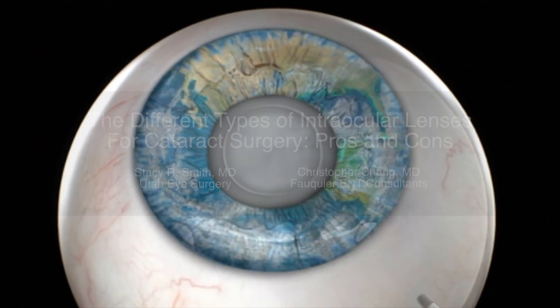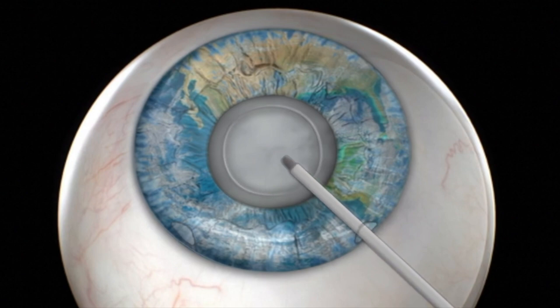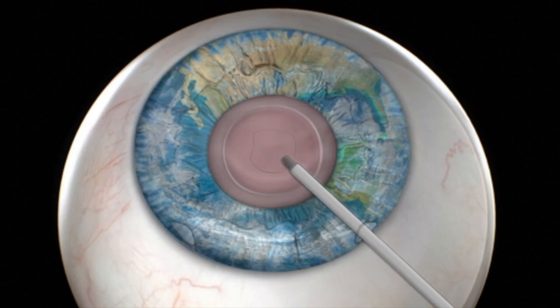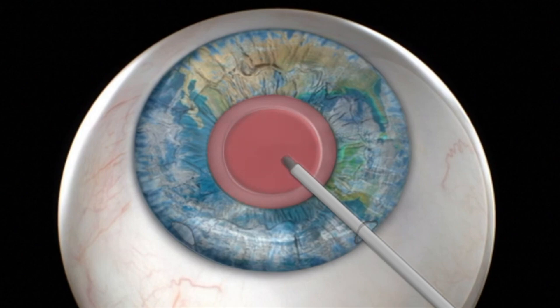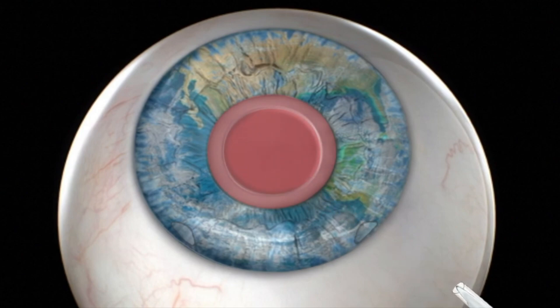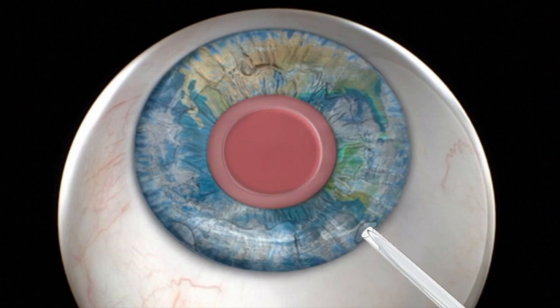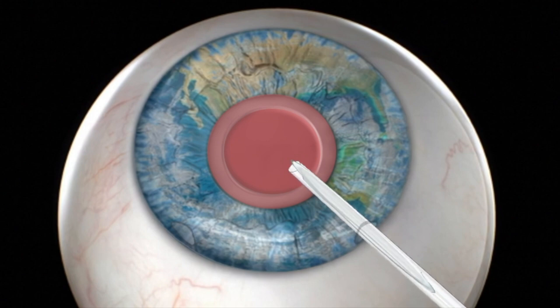When the natural lens of the eye becomes clouded from cataracts, surgery is performed in order to remove the clouded lens. During cataract surgery, the natural lens is replaced with an artificial one to provide clear vision and improve color contrast.